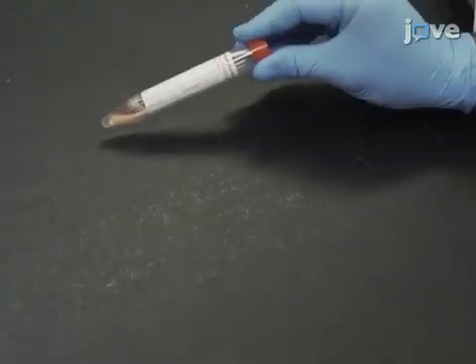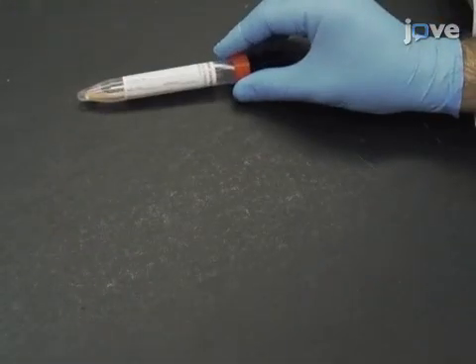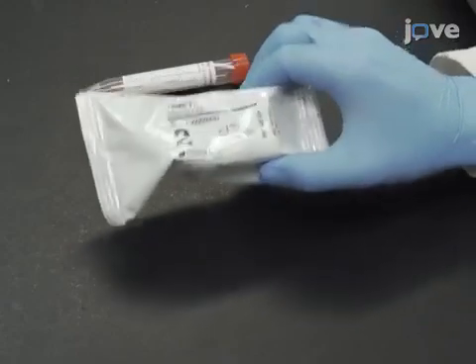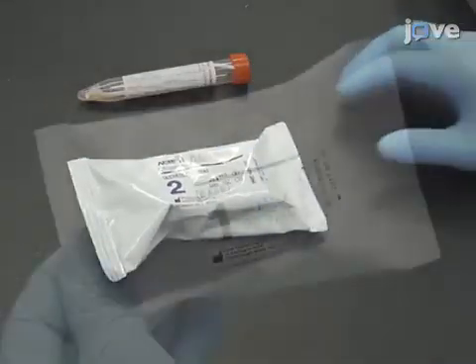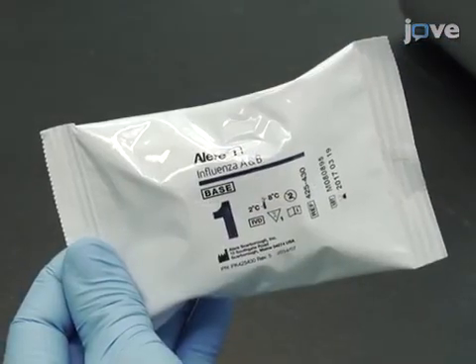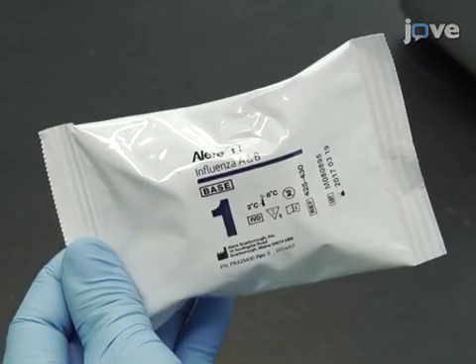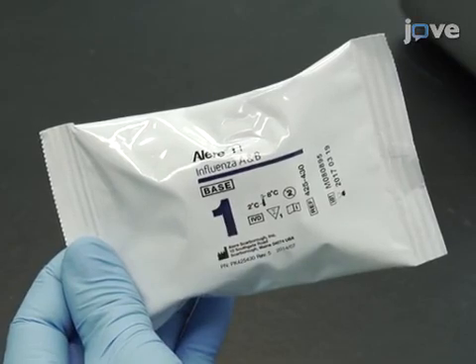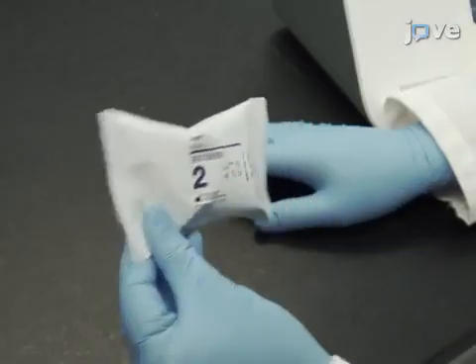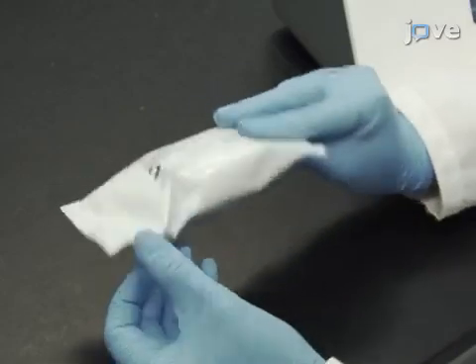Next, bring the sample and the blue sample receiver to room temperature prior to testing. The orange test base can be tested without the need to warm to room temperature. Leave all the test pieces in the foil until immediately before use.